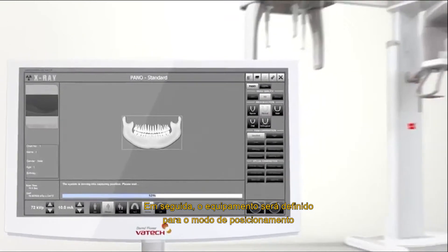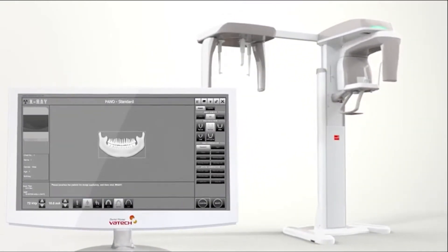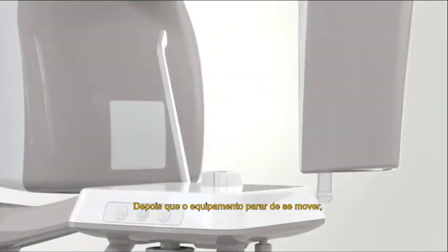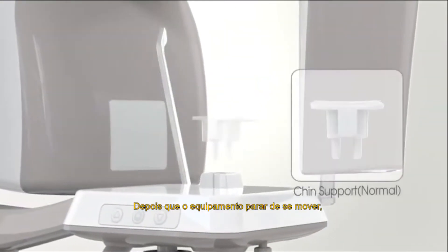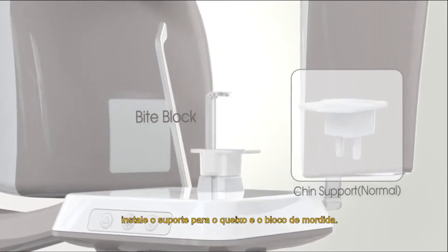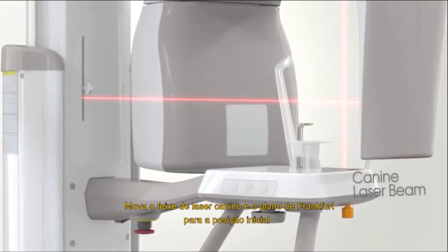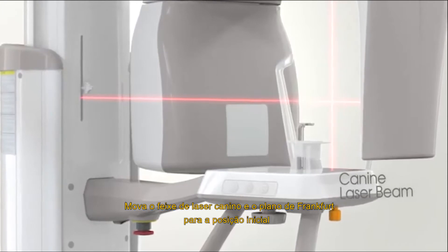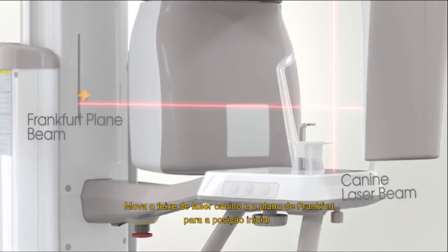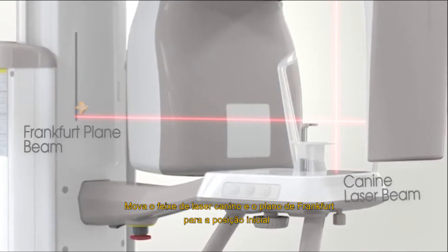The equipment will be set in positioning mode. After the equipment stops moving, install the chin support and bite block. Move the canine laser beam and the Frankfurt plane laser beam to the initial position.